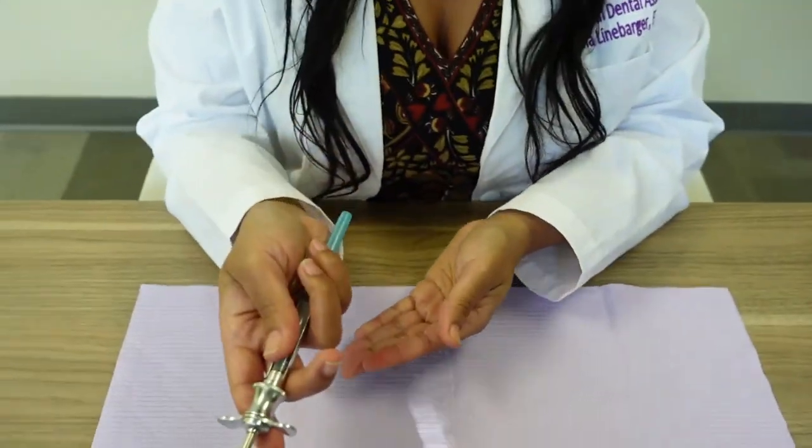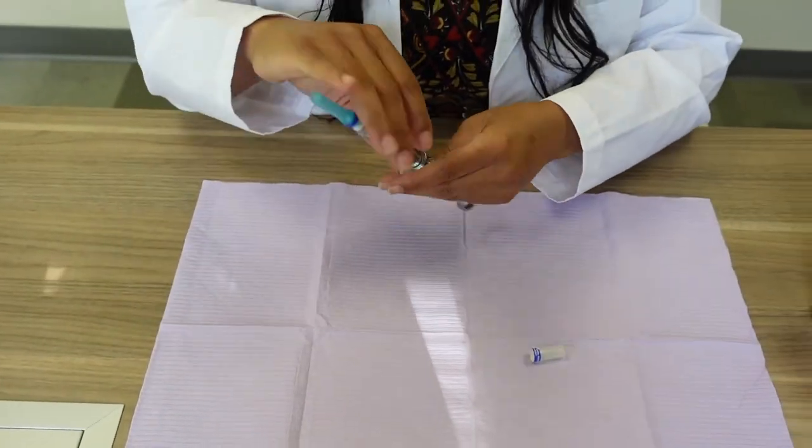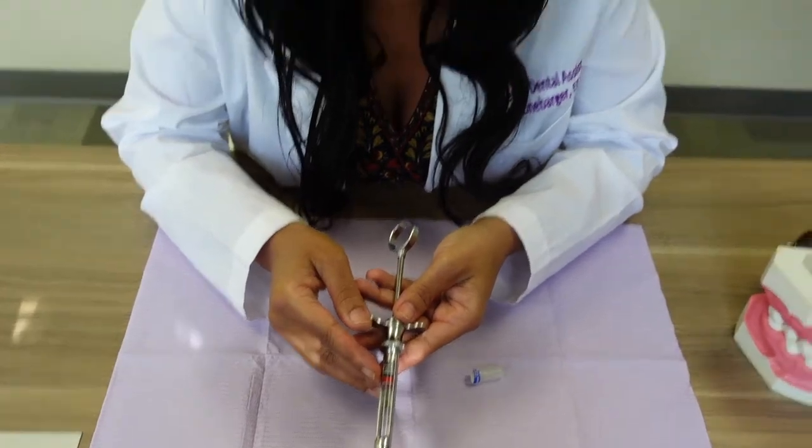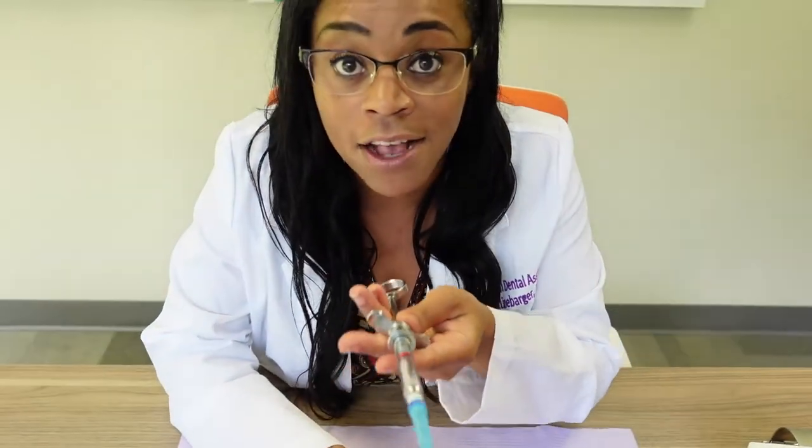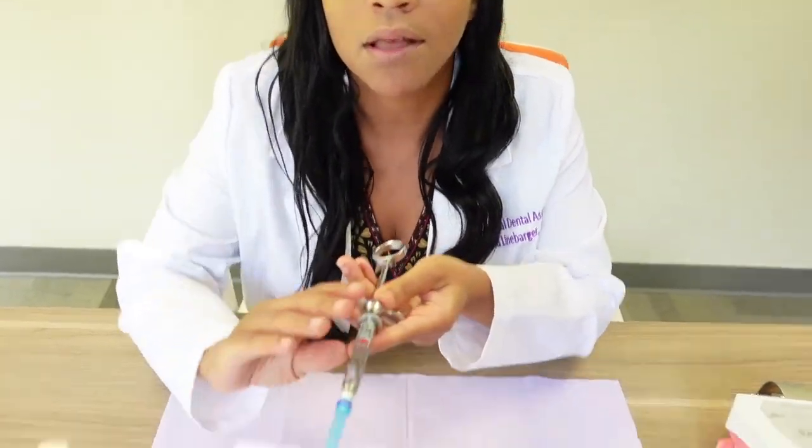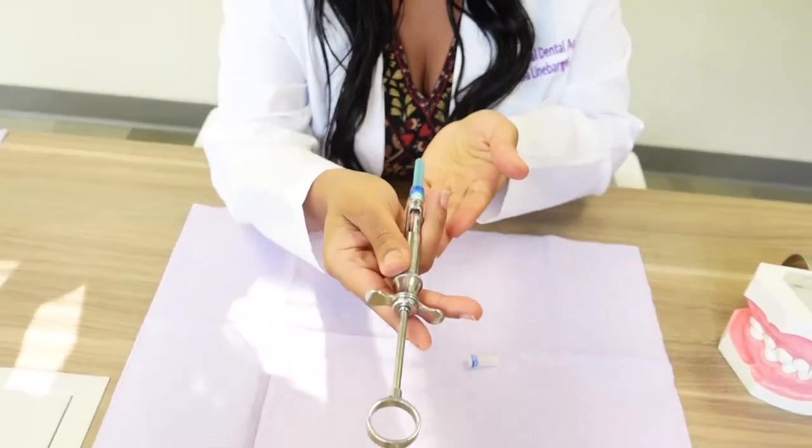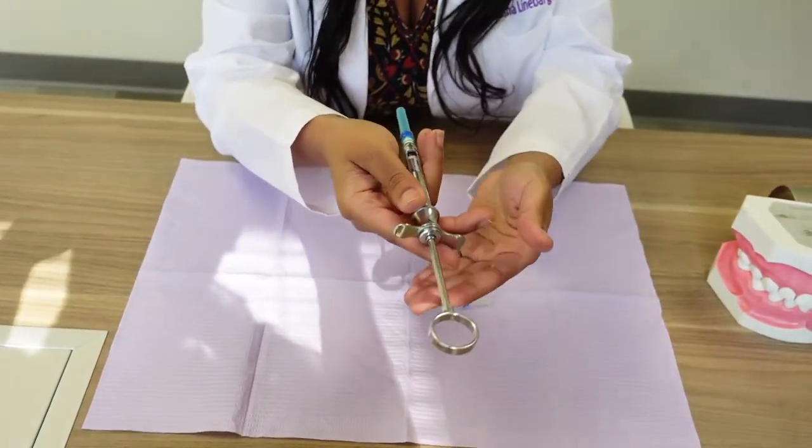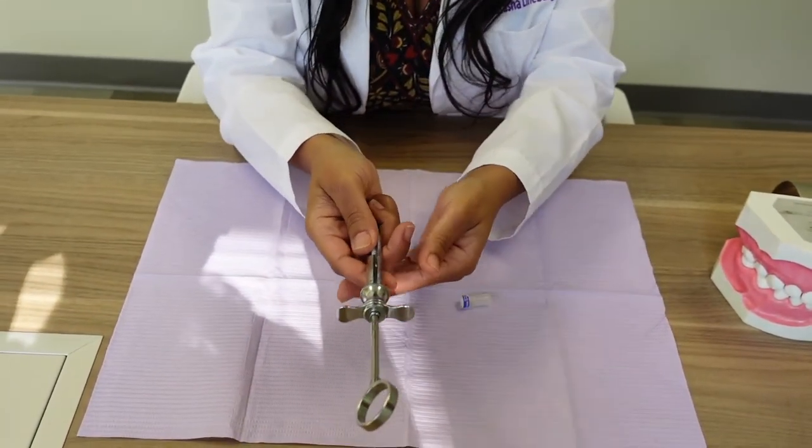Not like this - this is the wrong way to hand an aspirating syringe to a doctor. You hand the aspirating syringe like this. Not only that, your hand is going to be this way.